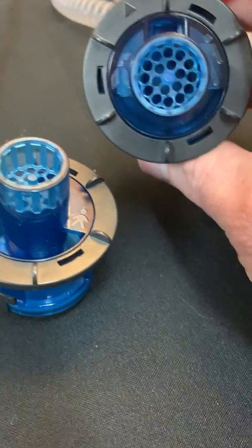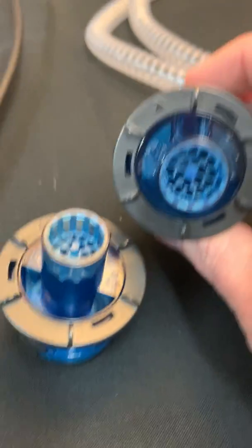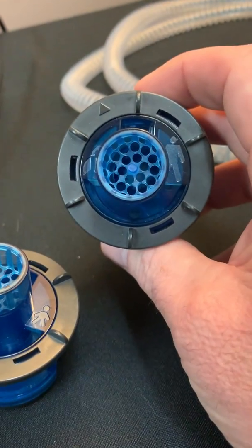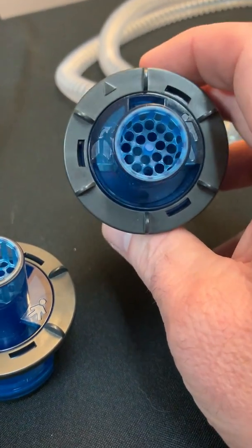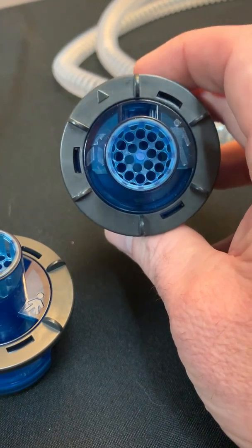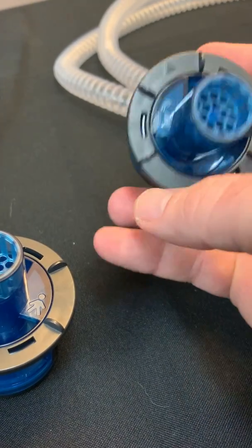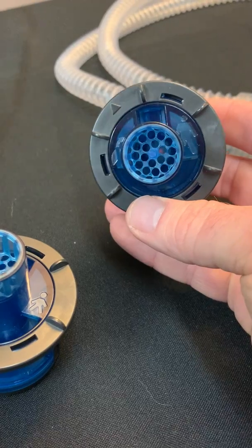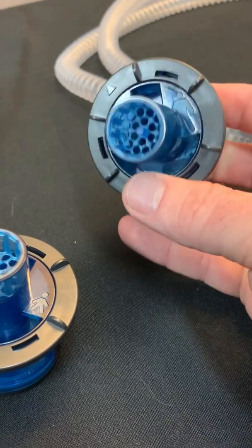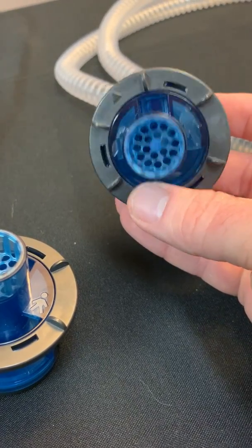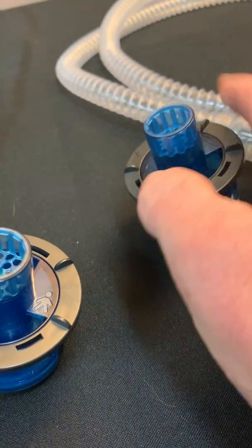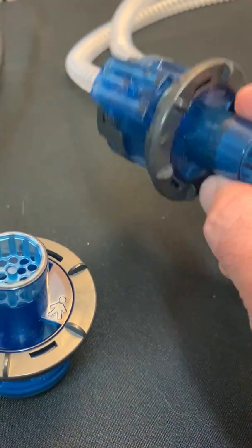Based on the settings that you will want to achieve with the Vivo 65. So for instance, a set tidal volume over 300 mls, you're going to need to use the adult valve. Okay, so we're going to use the adult valve in this instance.